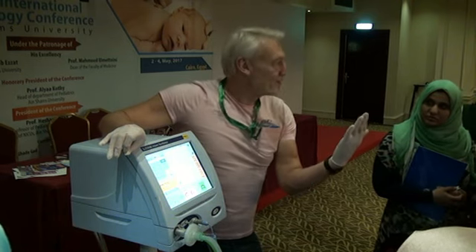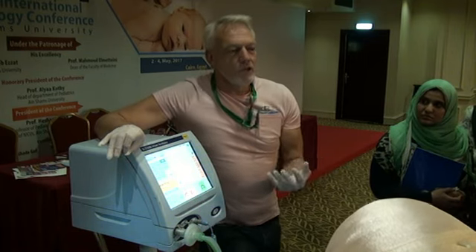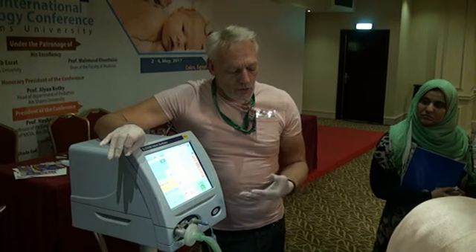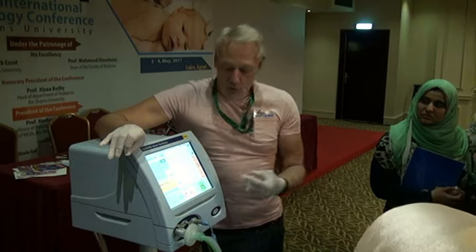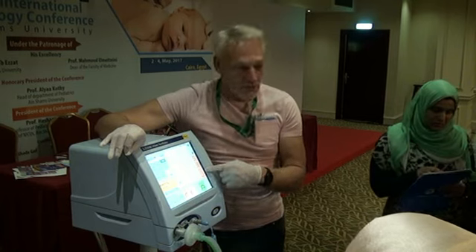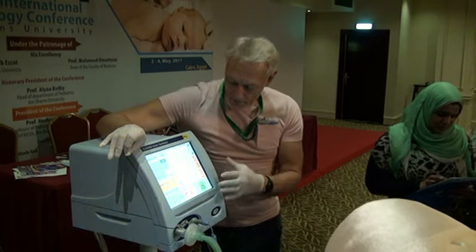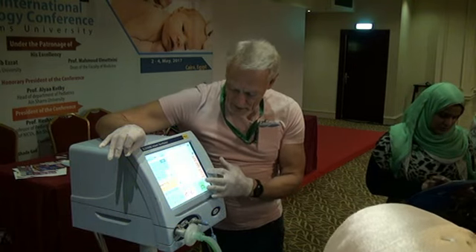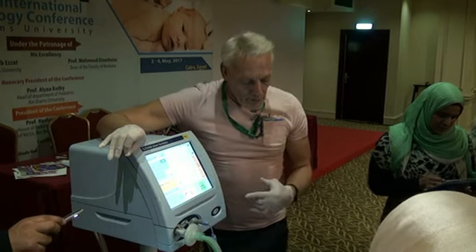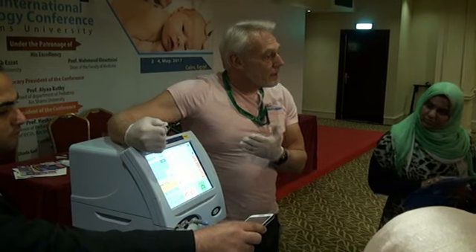You may see a whiteout on the chest X-ray. You may know there has been prolonged rupture of membranes. You may know there's dreadful RDS. You usually have an idea that lungs, or you've looked at the resistance and it's gosh, it's hundreds. This is only 51. Sometimes this is in the hundreds, and you can see very poor compliance. So we know this isn't a poorly compliant lung, but a stepwise increase is a very nice way to inflate.